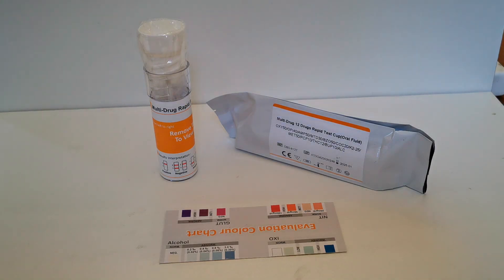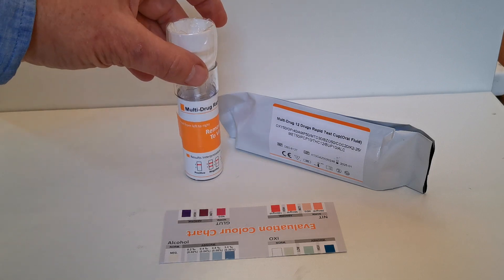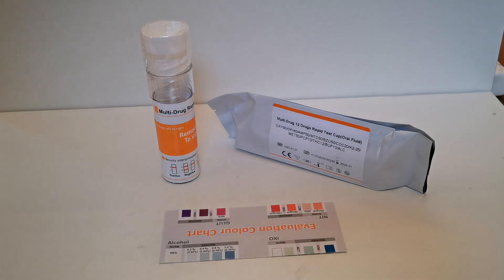Welcome to this product demonstration video for the barrel saliva drug test 8127, available in various combinations. This demo is basically appropriate for all the different combinations that you may have. The one we're going to show you is a combination that includes the alcohol pad saliva test as well.